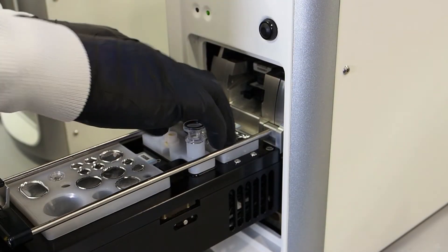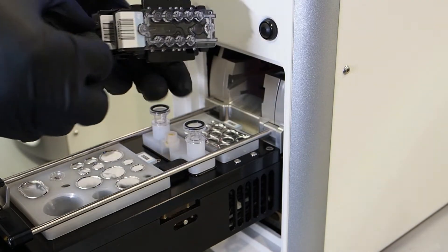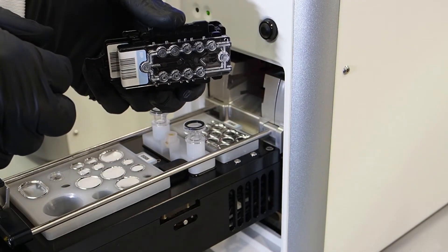Cap the amplification tube for disposal. Remove the test cartridge and immediately orient it to its side.